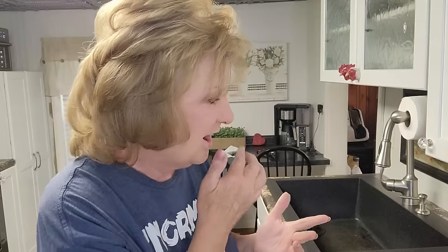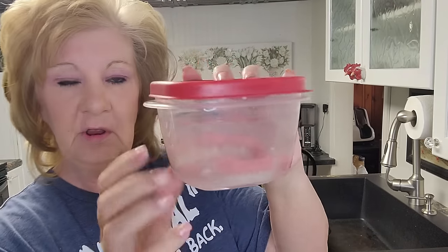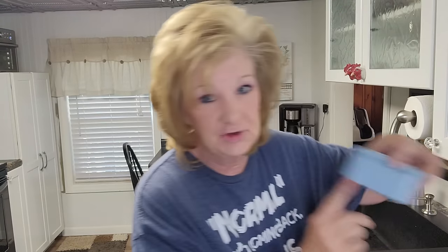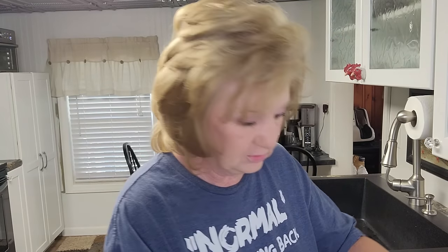Can you tell that I have these in? It's morning — welcome to my morning. I've got these sitting in water. I put them in a Tupperware thing because my other denture cases are taken up by my immediate dentures and my DentureBox dentures. So Tupperware it is. I put them in cold water overnight and they're still holding their shape.